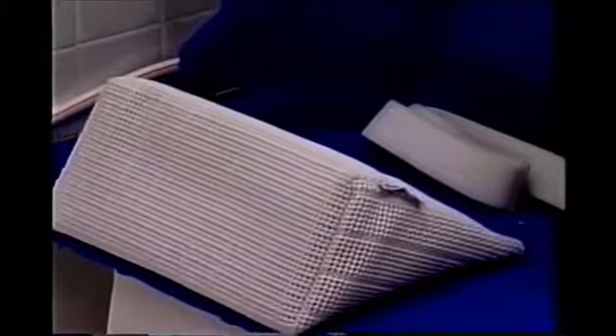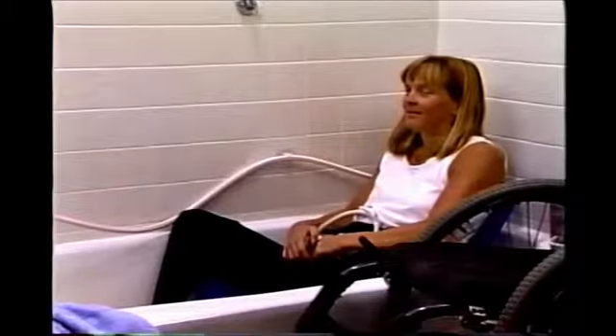For individuals with special seating or positioning needs, AquaTech optional accessories include special fixed back supports, reclining back supports, head support, and positioning cushions. Safety belts are available as well.